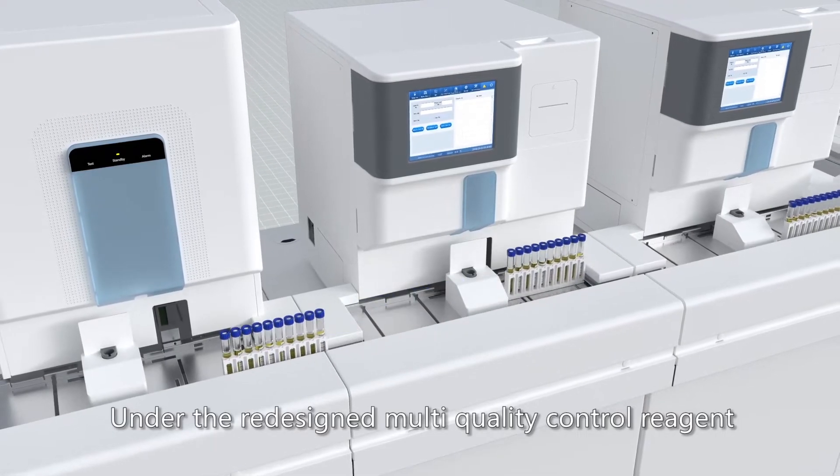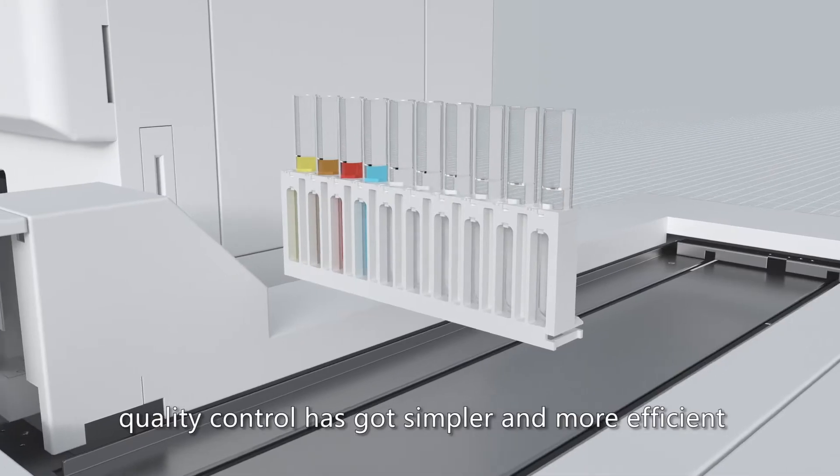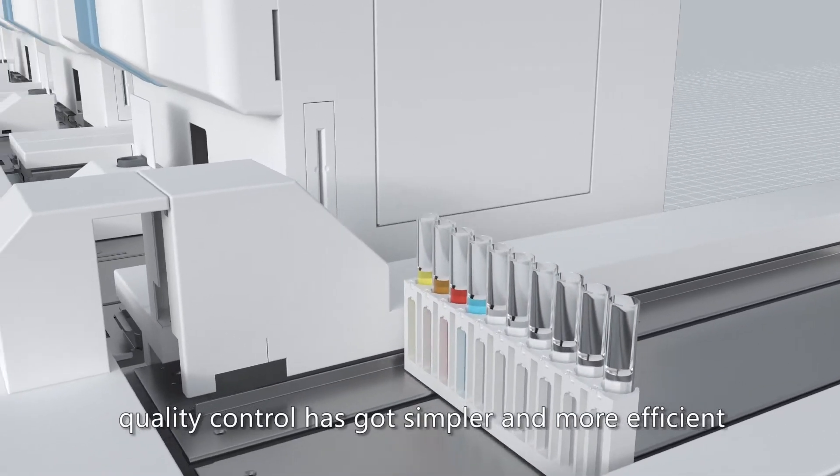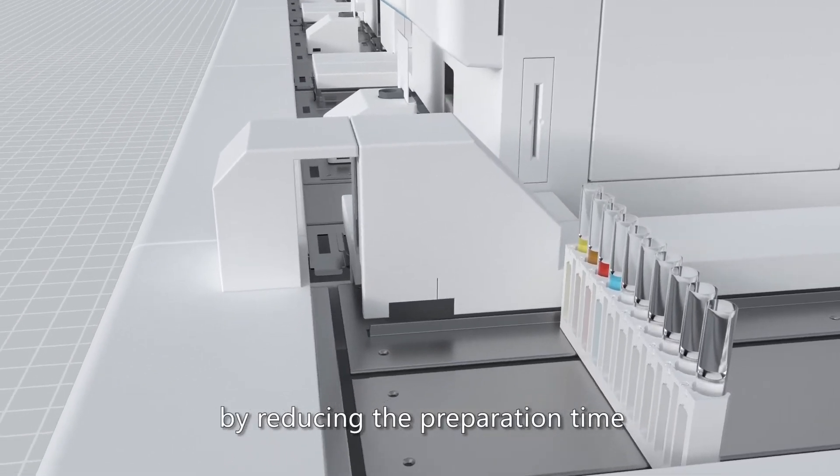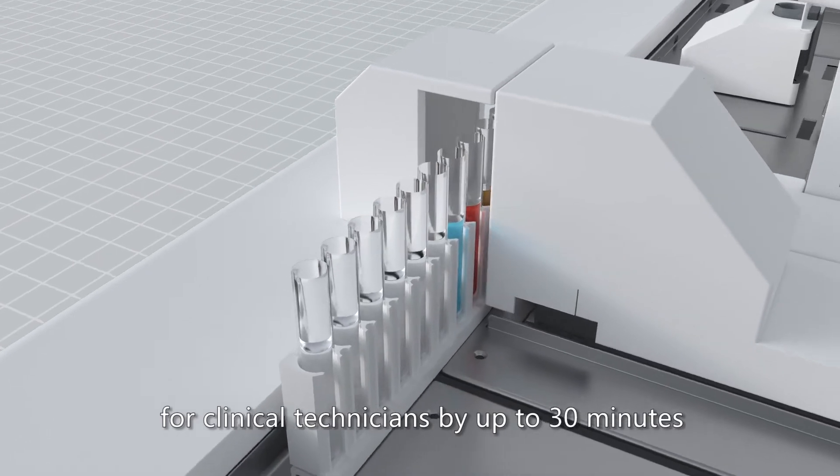Under the redesigned multi-quality control reagent for all physical items, quality control has become simpler and more efficient, reducing the preparation time for clinical technicians by up to 30 minutes.